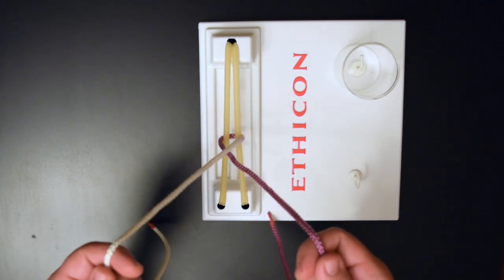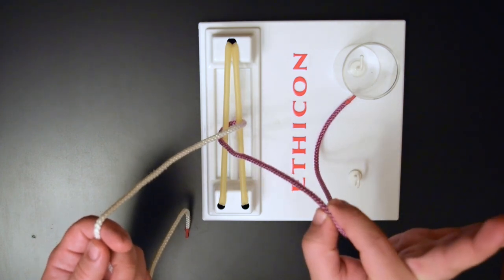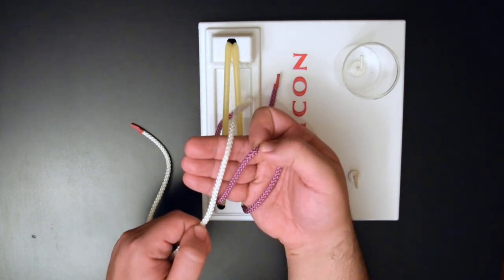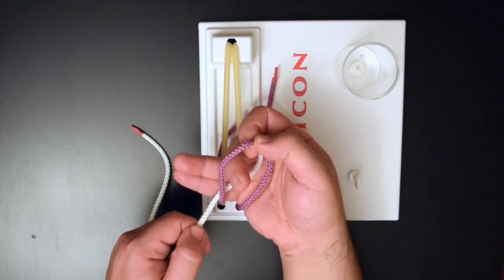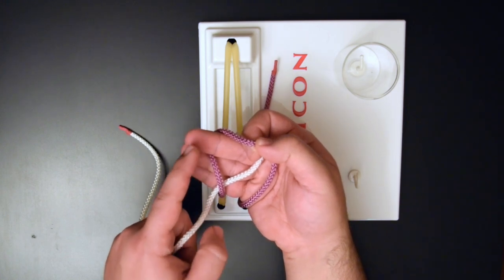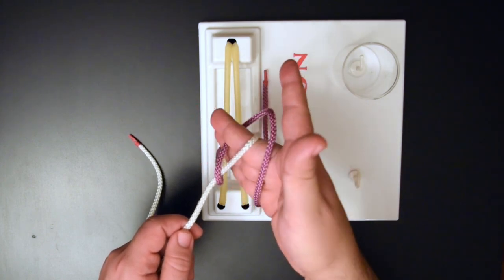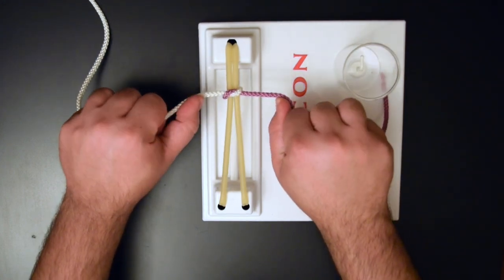Get on your horse and get ready to tie. Give an OK sign, come down, cut your suture in preparation, and start tying. Cross the strands over your three fingers. Flex your middle finger, catch the purple strand on the backside of your middle finger. Then pinch down between your middle finger and your ring finger. Let go with your index finger and your thumb, rotate your hand out under the bridge, and pull the suture out. This gives you your first throw — your half hitch. Throw that down.